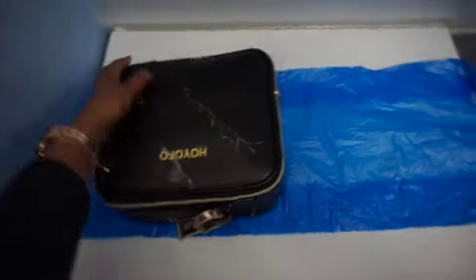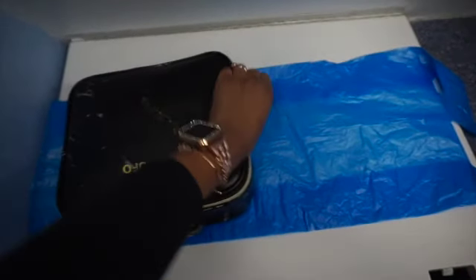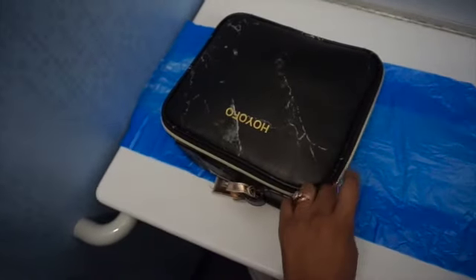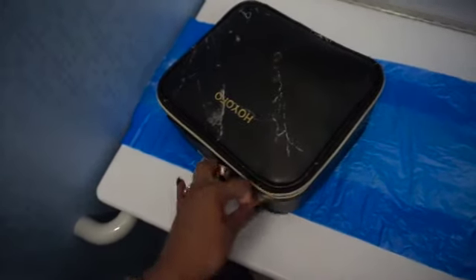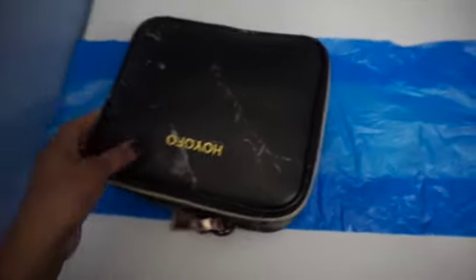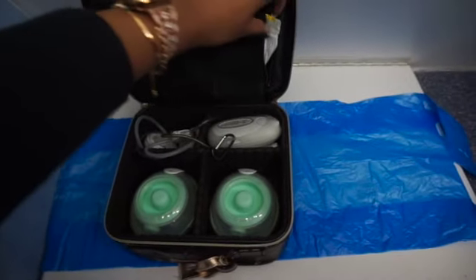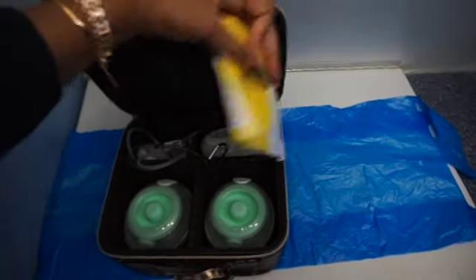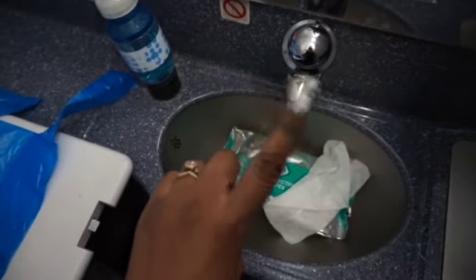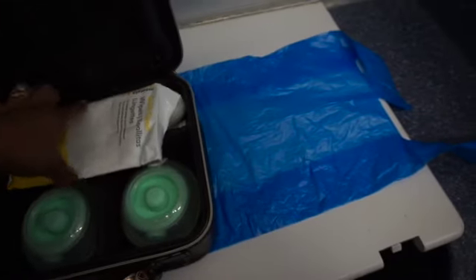Here I have my pump bag — this is the bag that I keep my Stride in. We're going to open it up so you guys can see what's going on in here. It's not easy trying to record and hold the camera with one hand, so bear with me. I keep my pump nice and organized. Right here I have my wipes — my pump wipes — I'll go into detail on those a little later. There's a little sink in there, but you don't want to use that. That water is not potable; you don't want to drink it and you don't want it on your pump parts. It's disgusting.